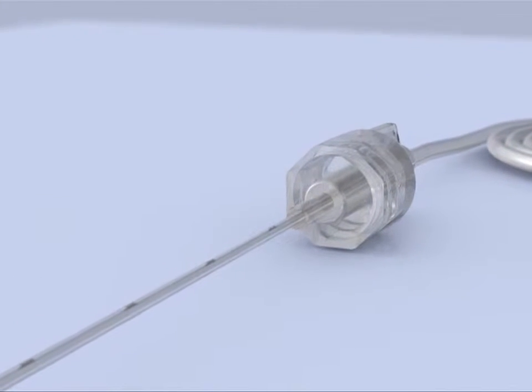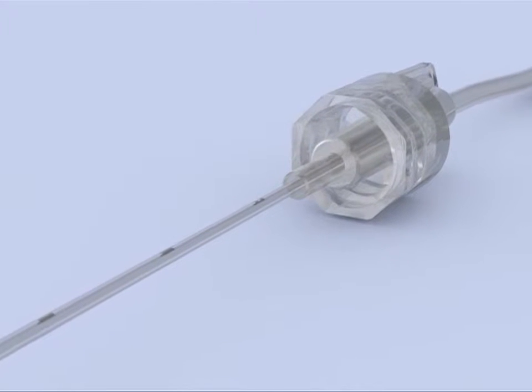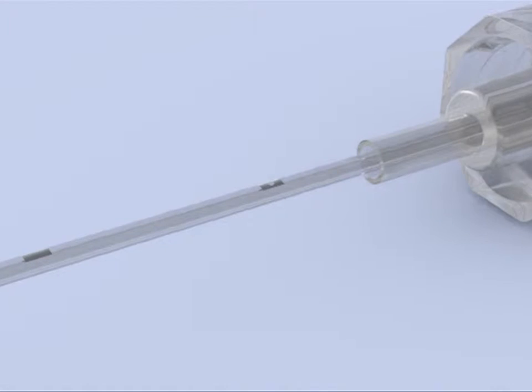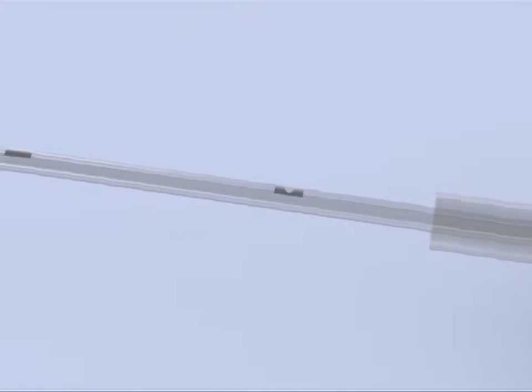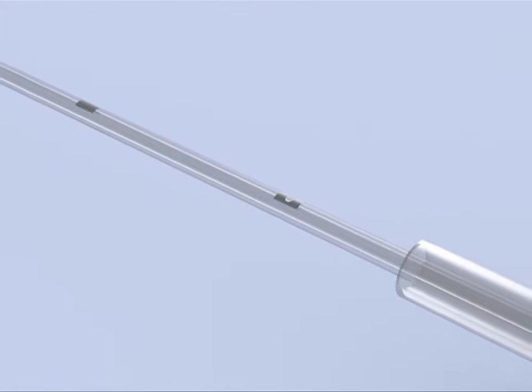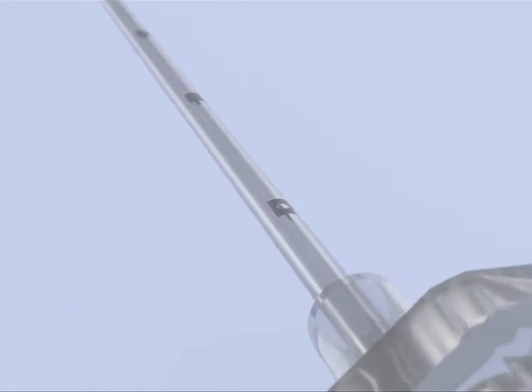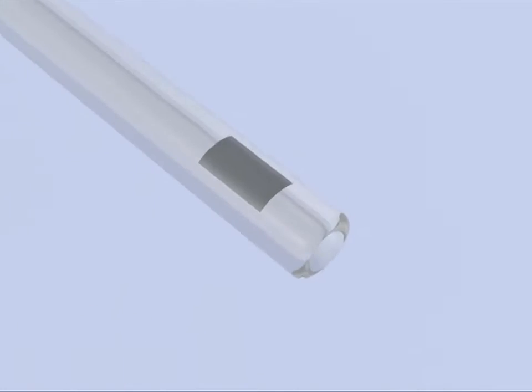The E-Cath itself, which is inserted into the sheath, has firstly a proximal opening at the 1cm marking, and a singular end exit.